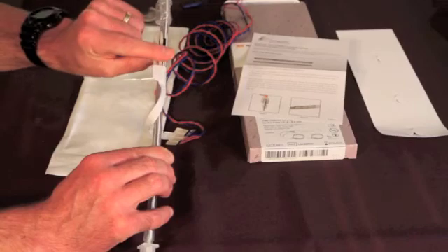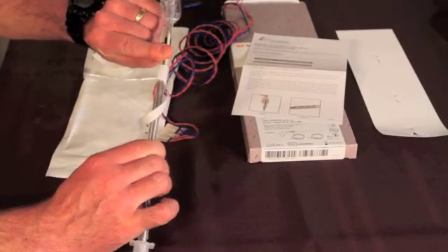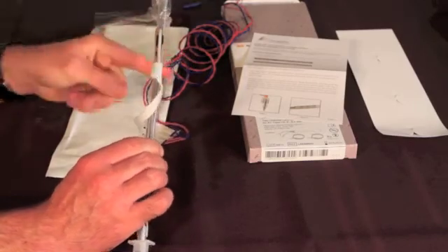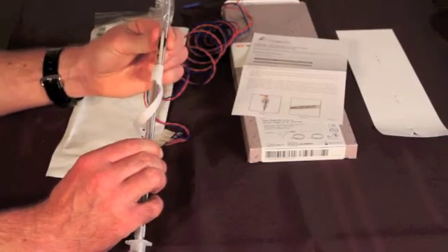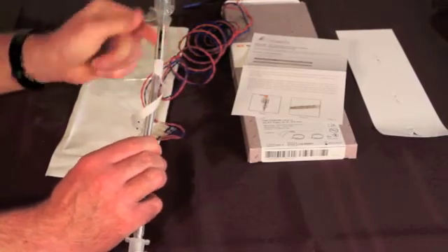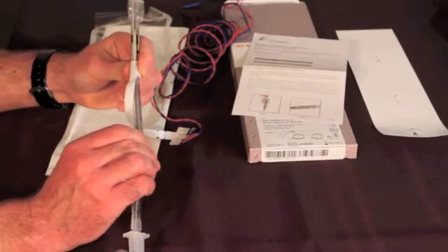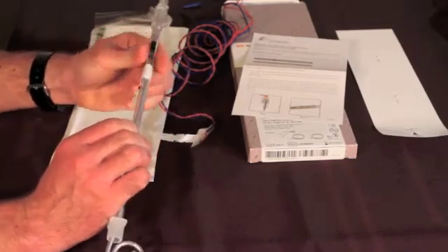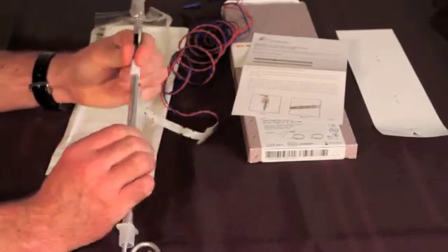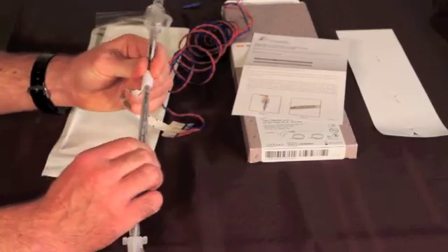I'll now go to this side and press from the middle. It's going to overlap a portion of the electrode that came around on the bottom, and then I'll go out to each edge and press it down. Now the electrode is adhered. I'm going to just press everywhere to ensure that it's properly adhered all the way around.